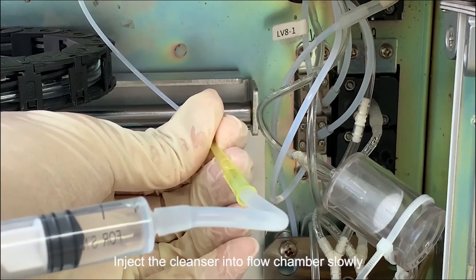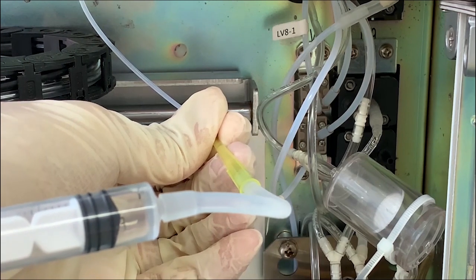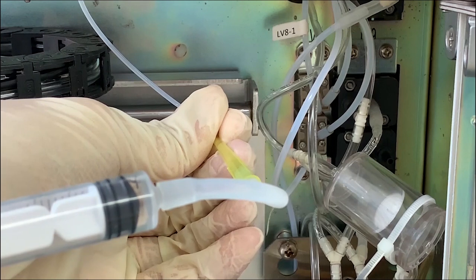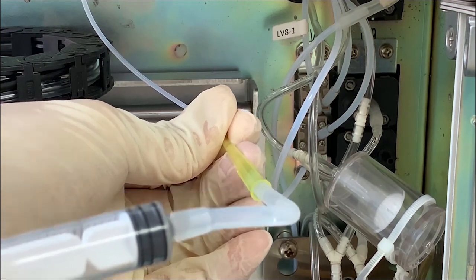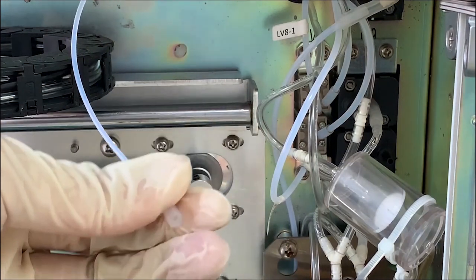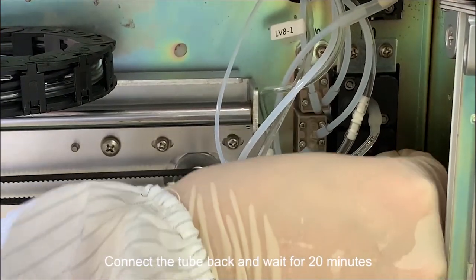Inject the cleanser into the flow chamber slowly. Connect the tube back and wait for 20 minutes.